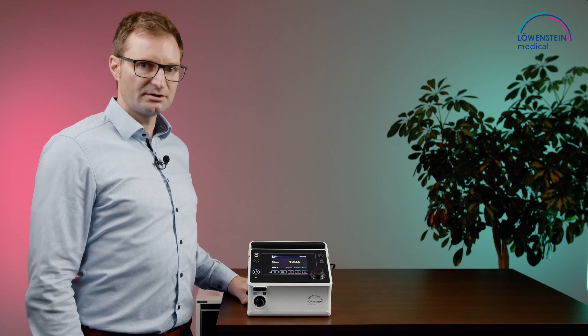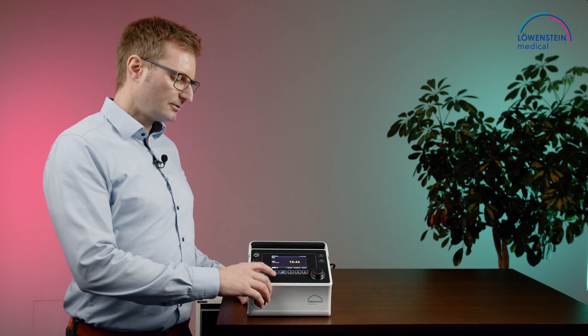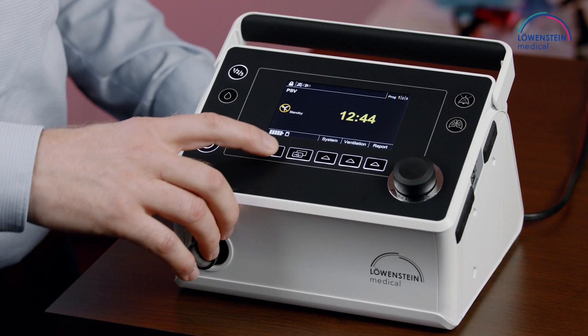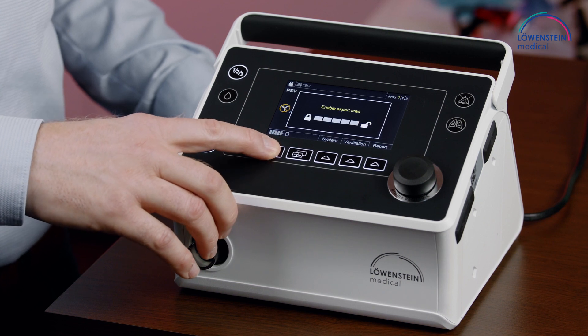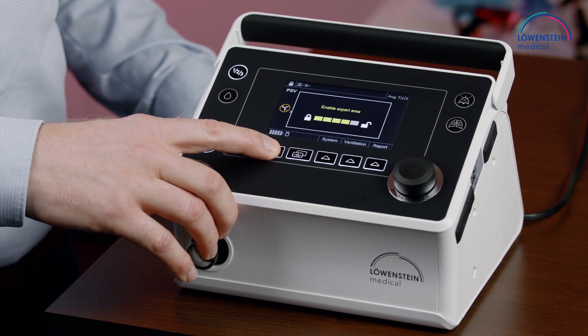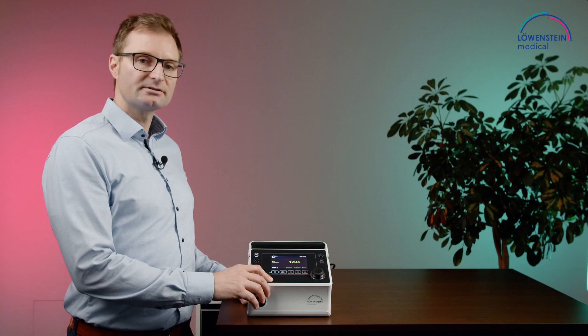To set the ventilation, we need first to unlock the device, so we press the home button until the device is unlocked.